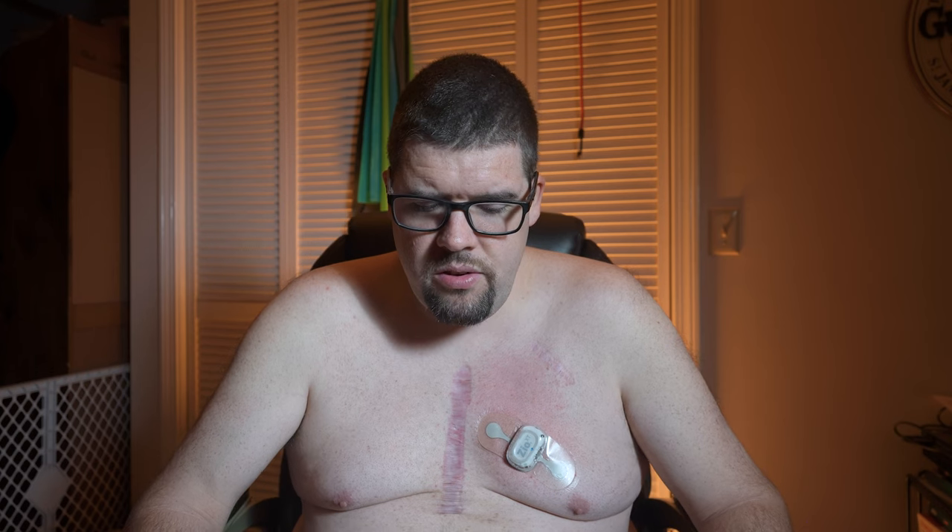When your wear period ends, return the monitor and log as soon as possible. The doctor is going to notice I'm having symptoms from this. Recording symptoms: a symptom is anything that feels abnormal, such as palpitations or feeling dizzy. For me, my symptoms for PVCs — I'll be just sitting at my desk working or watching TV and then I just start feeling really weird.